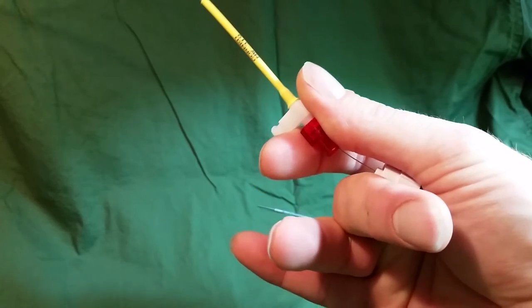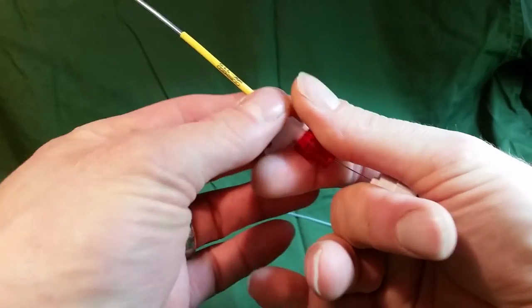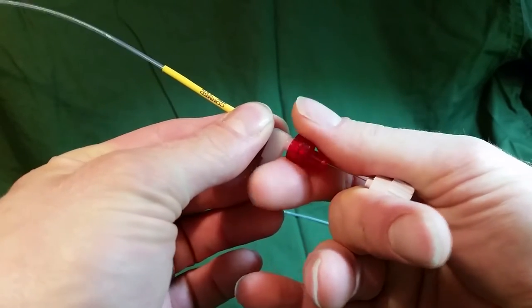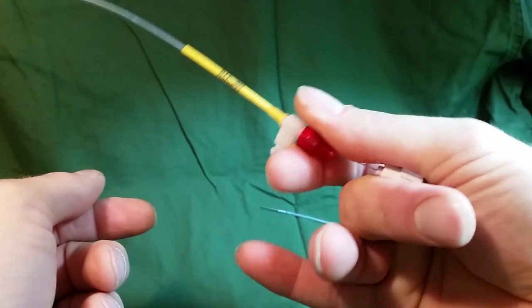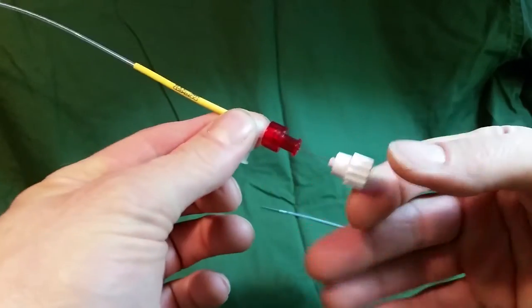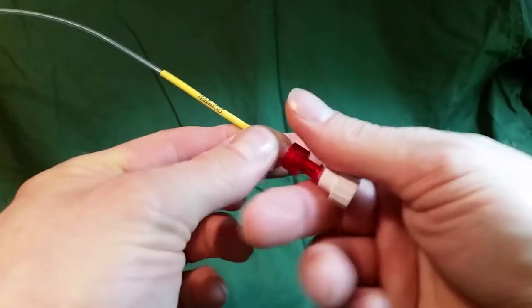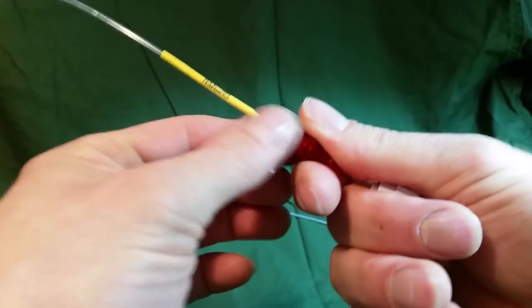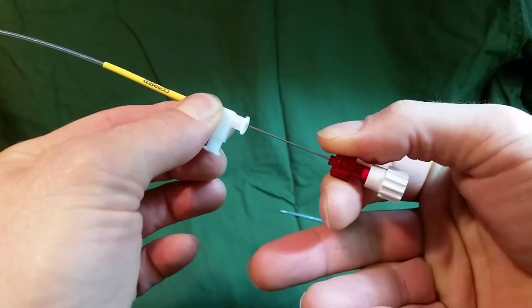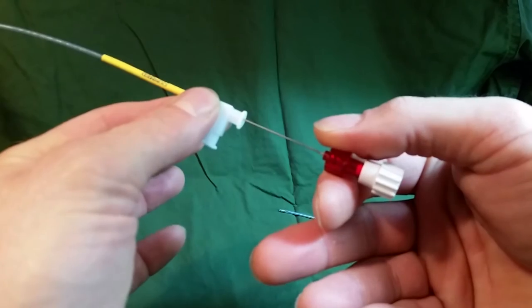This step, you're going to have to work out your own salvation. I have enormous hands. I can hold the white ball, the trocar, back from the red ball, the needle, just with my thumb. But if I let go, the trocar will spring forward and my sample is lost. Also, the same thing when I have the needle back — if I let go of the trocar, it springs forward and my sample is lost.